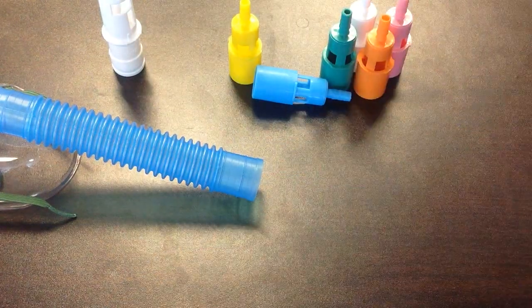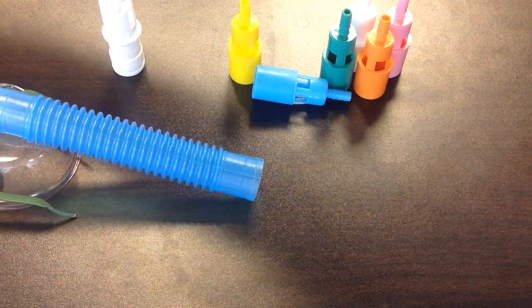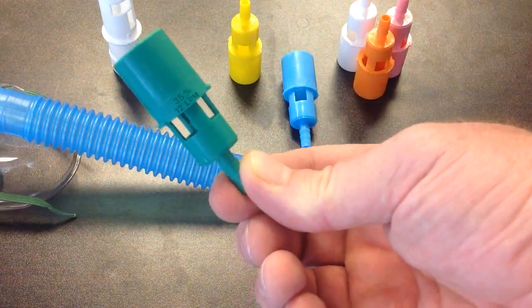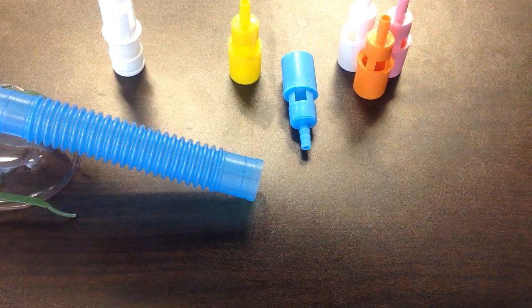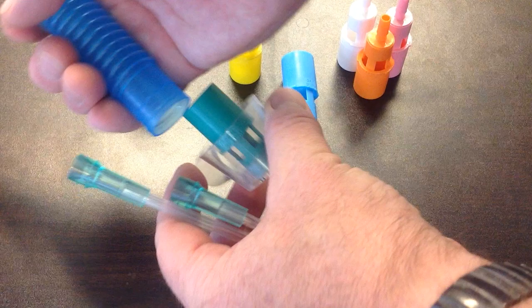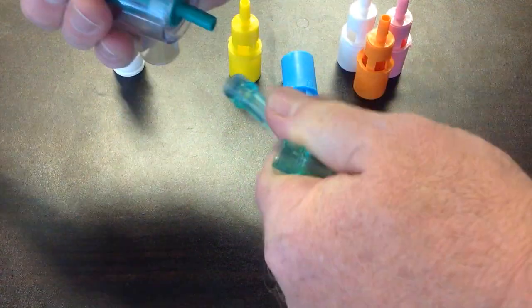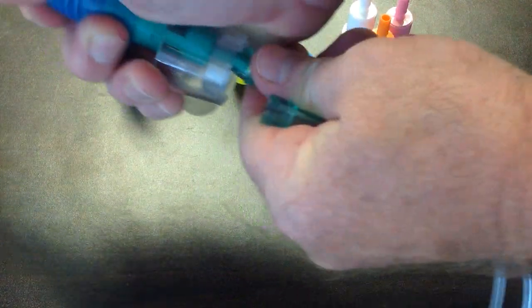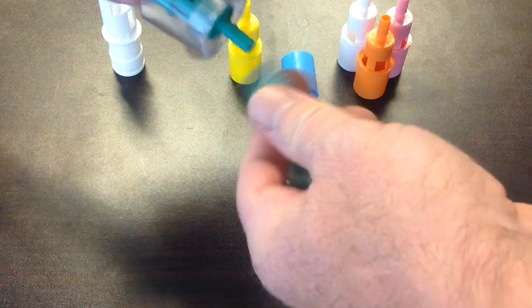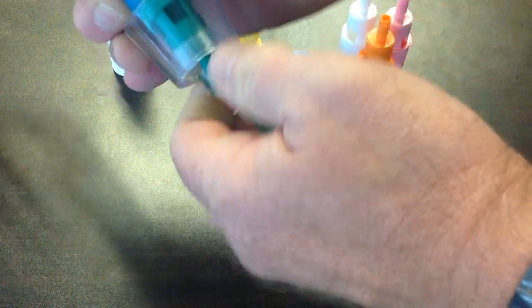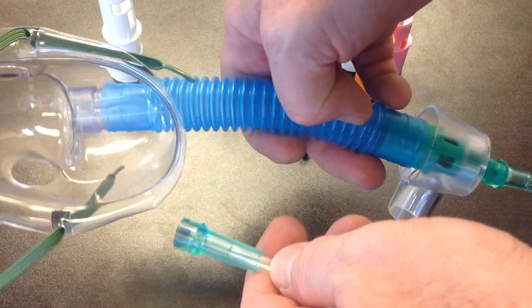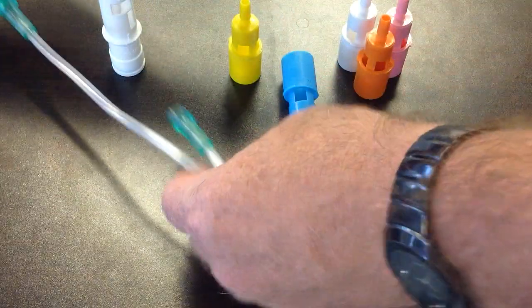With the other ports, if you want to set up a, let's do the green because it's easier to read, 35% Venturi mask. This will go in here. This will go in here. Those go together. And then this end will get hooked to the flow meter at 12 liters per minute. That is your Venturi mask.